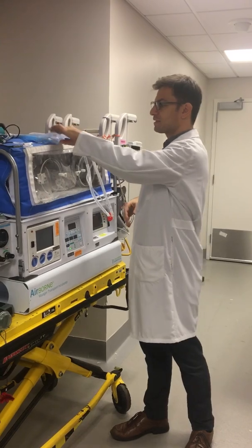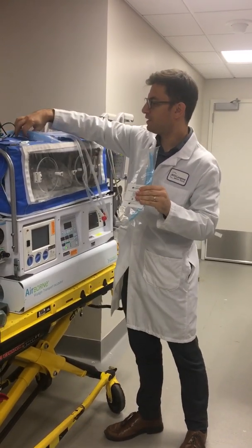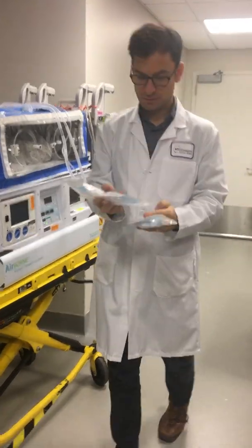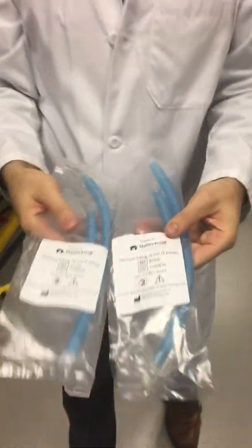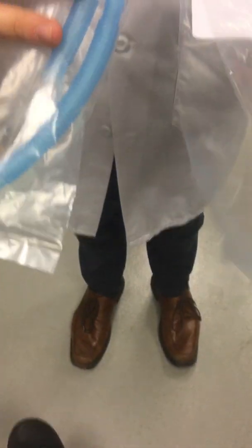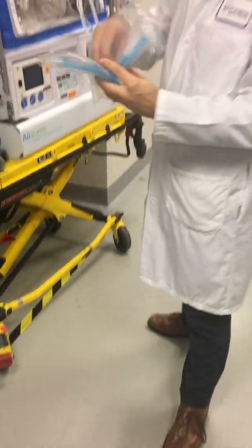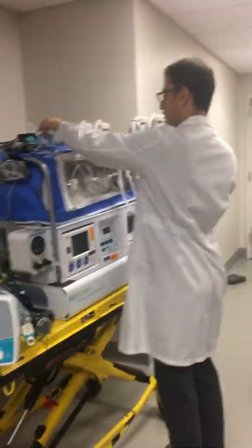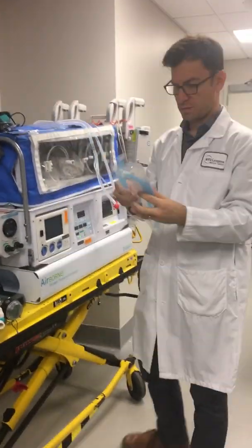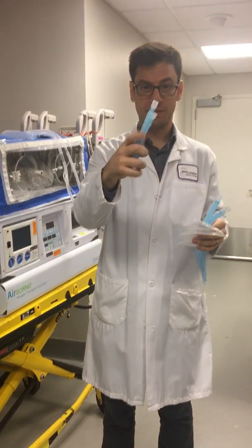For nitric oxide, we need two packages from Mallinckrodt — the nitric oxide company — called neonatal tubing, two pieces. Each package has two pieces: a long piece and a short piece. We will need the short pieces from these sets, so two short pieces total.